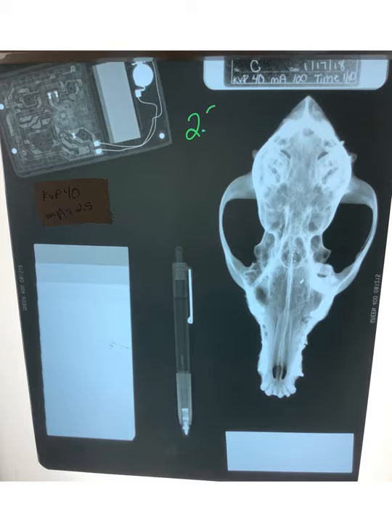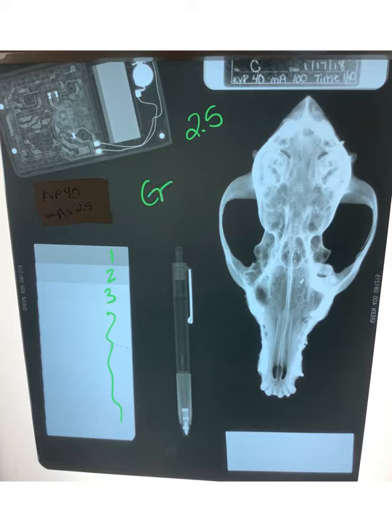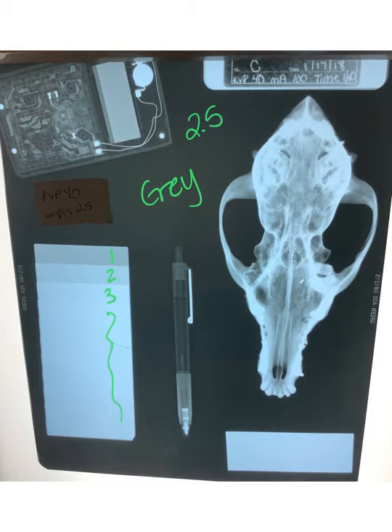This x-ray is one we had previously, where our MAS is at 2.5. We can see the step wedge — counting those steps, we see about three and then a sea of white. Looking at the skull, it looks pretty white, and our background is a fairly gray color. Anytime you see a really gray background it means your MAS is probably a little too low — we need more numbers. You want to see white on every x-ray and black on every x-ray, with shades of gray in between. How many shades of gray you want depends on the body part and the contrast level you need, which you adjust with KVP — but you definitely want enough MAS to see black on your film.